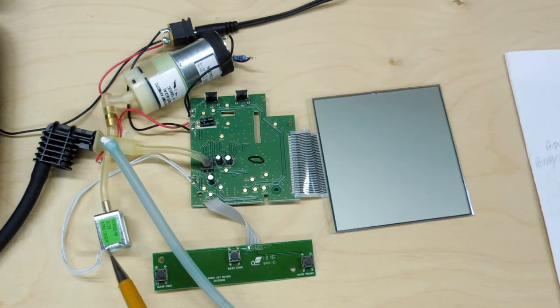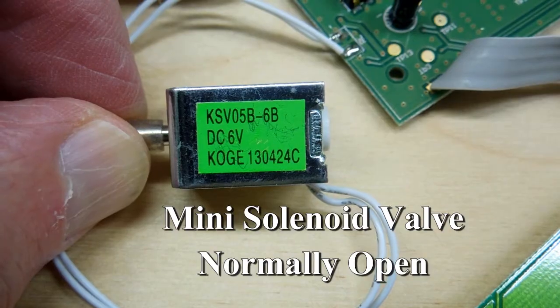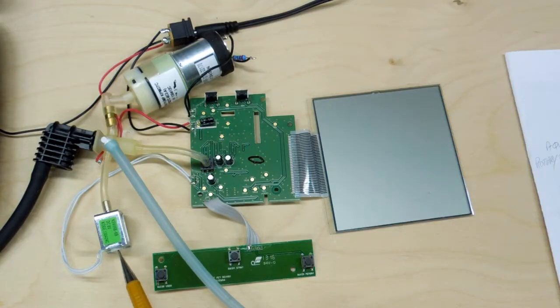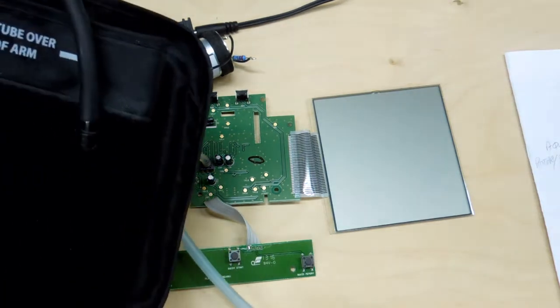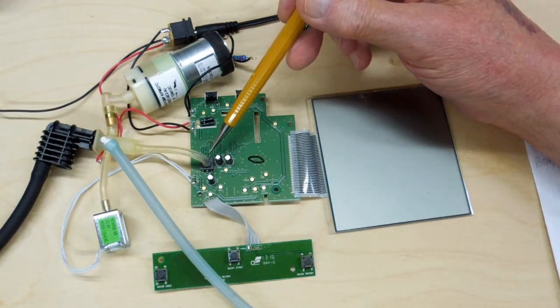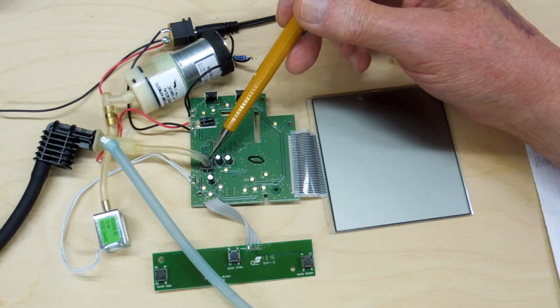Searching for the other component, you find out it's a mini solenoid valve, which is normally open. When the pump starts to run, it powers this up and closes the valve. At the end of the test, it opens this valve and drains whatever air remains in the pressure cuff. After doing a few more tests, this other piece is strictly a pressure sensor.